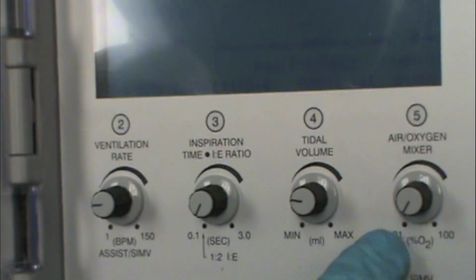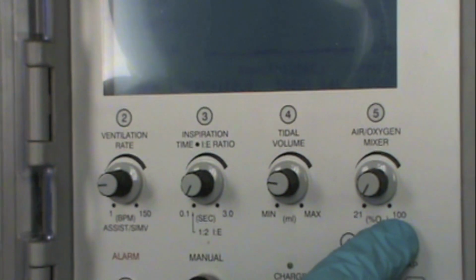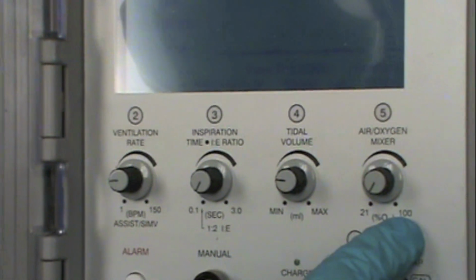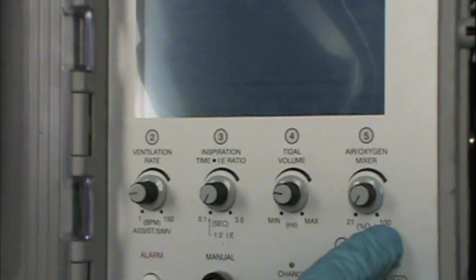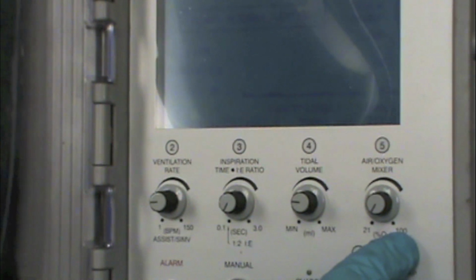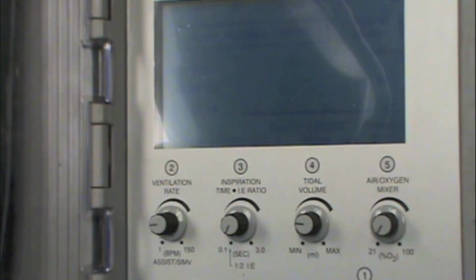So we used to be really liberal about giving patients 100% FiO2, and now there's a lot of good information out there to suggest that we should give only enough oxygen required to maintain an O2 sat of about 98 or 99%. So that's, in the transport setting, a great way to make sure we're not giving them oxygen toxicity. So we can just watch their pulse oximetry as long as they have a good waveform and we feel comfortable with the setting that we have on there. An O2 sat of 99% is ideal.